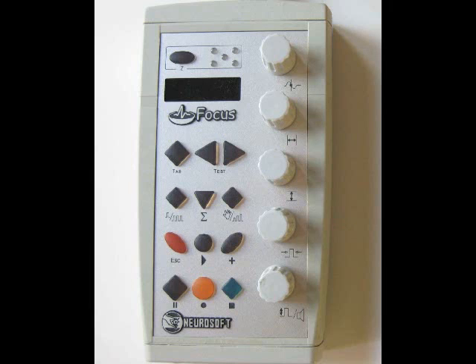This is why we call this machine the machine for the rest of us. I'm going to go over some of the functions of this machine, go over some of these buttons and knobs that you see, and then we're going to go over each and every single one of them for the different tests that it's capable of doing.